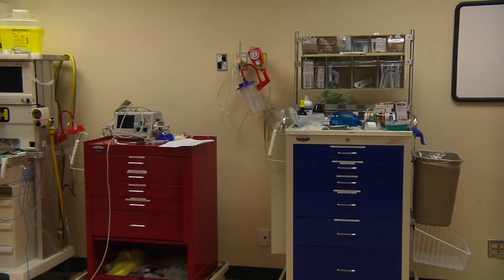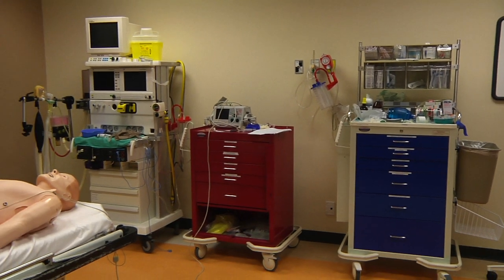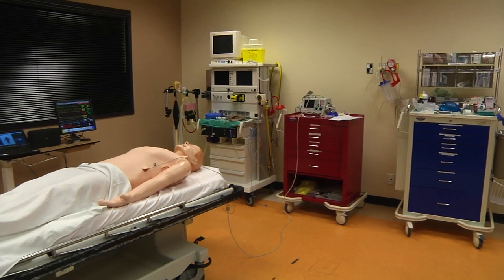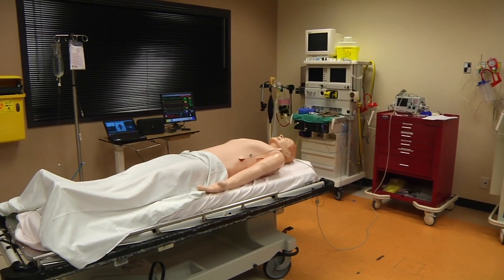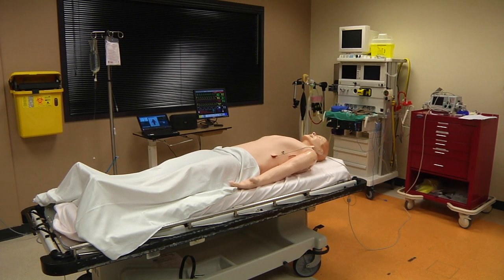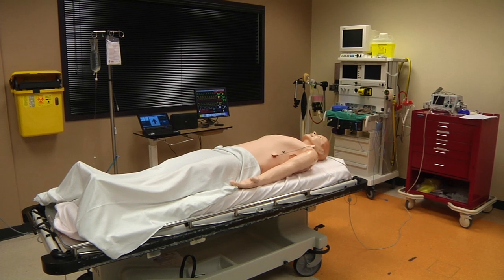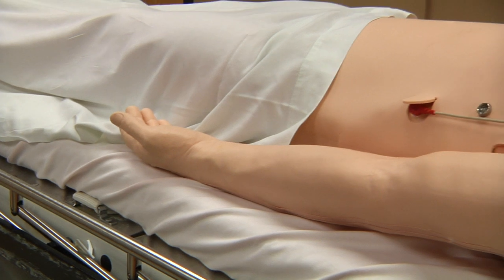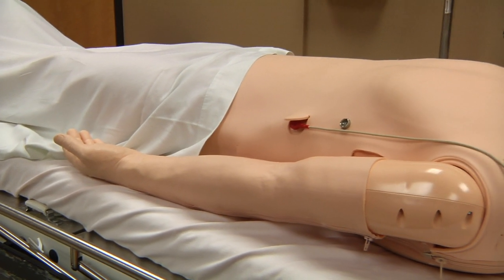Hello and welcome to the Center for Simulation Based Learning's orientation video series. To make each learning opportunity as valuable and meaningful as possible, it is important that you understand the capabilities of your patient simulator, along with the expectations for your actions during a medical simulation. This video is your introduction to Laerdal's SimMan 3G, a wireless high fidelity patient simulator.